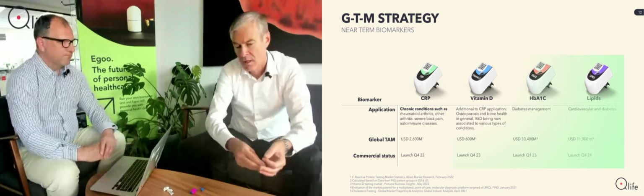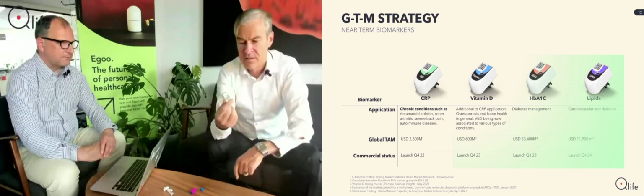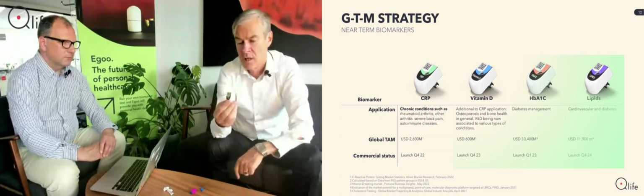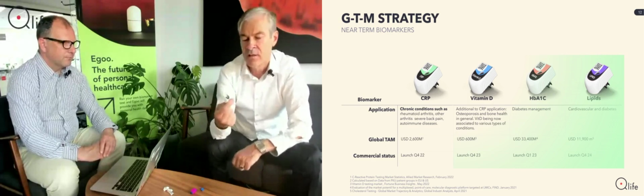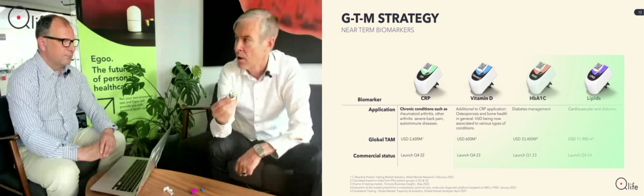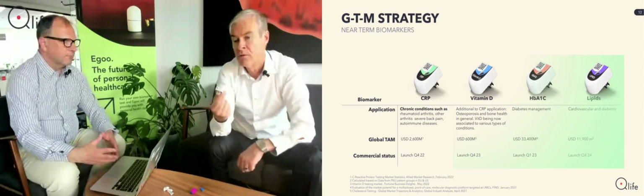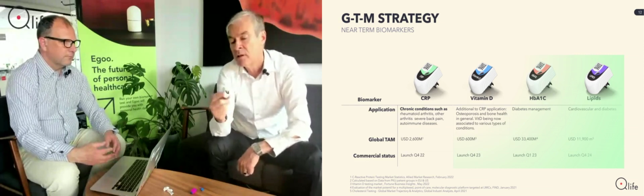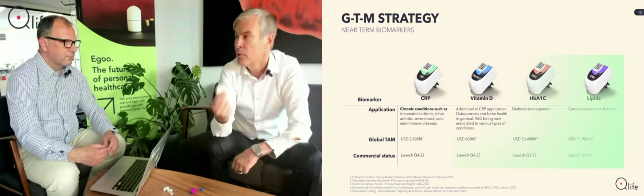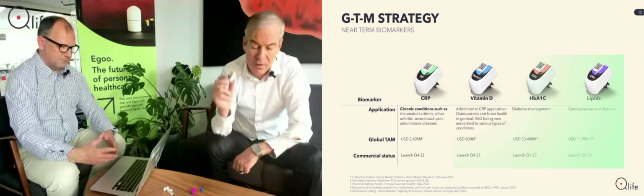I mean, it is the typical razor blade model, and this capsule here, as people can see, consists of plastics and reagents. So it can get very cheap. And that was not coincidental. We designed it so that it can get very cheap. Right now, we have a cost price of around, I think, €3.5 per test. We sell it at 20. But in the long term, it should get well below €1 per test. Oh, yeah. Okay. And even further. So it can get cheap.